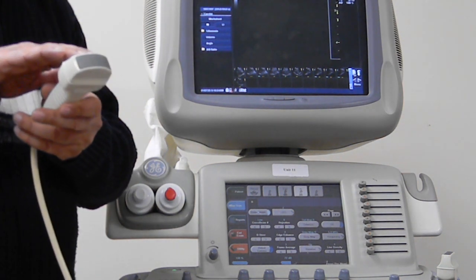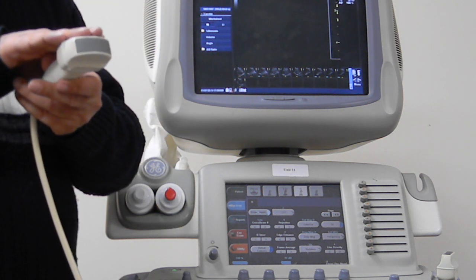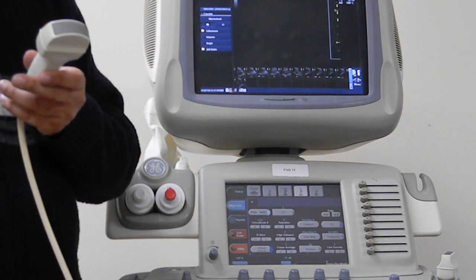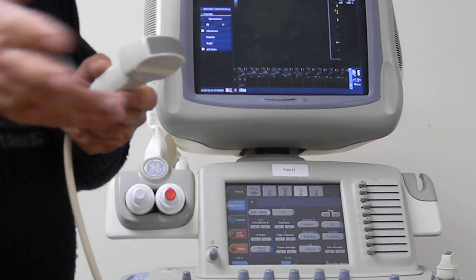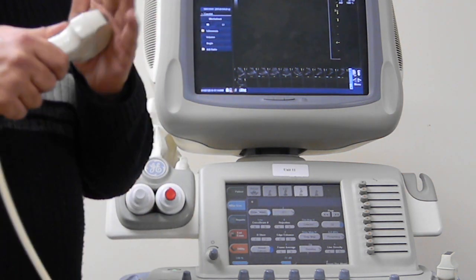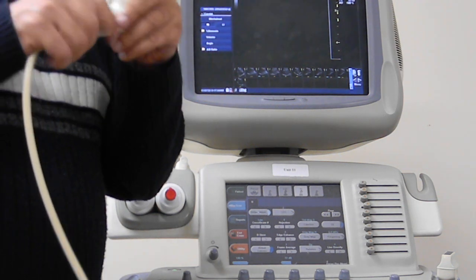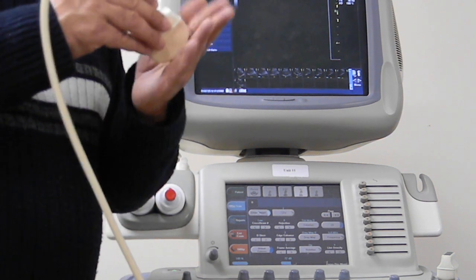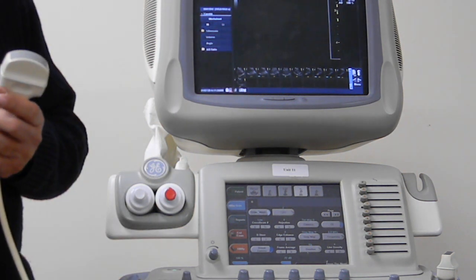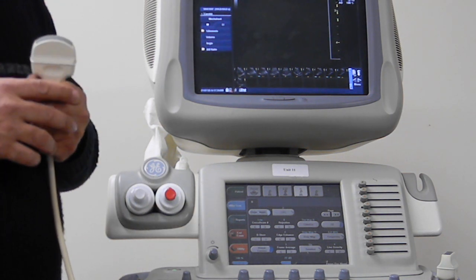But we mainly want the gel to reduce impedance so that the sound wave that travels from your transducer will be able to hit the skin. And what happens after that is going to be determined by the tissues. Clear? On top of that, it's probably going to be easier to rub or slide the transducer over the skin where there is a gel, because it still acts as a lubricant. But the primary function of the gel was not to act as a lubricant, but rather to reduce the impedance.